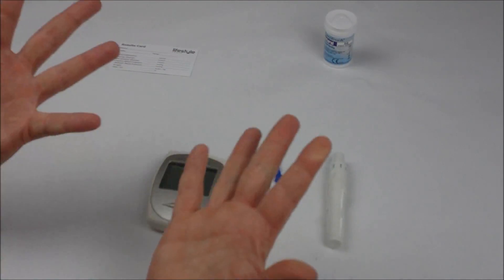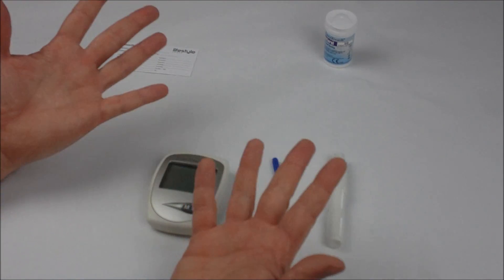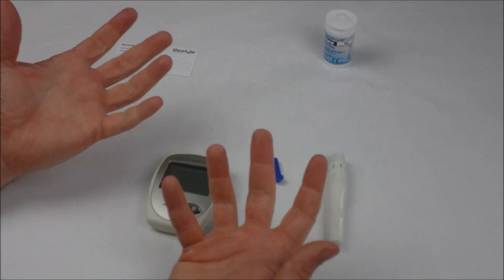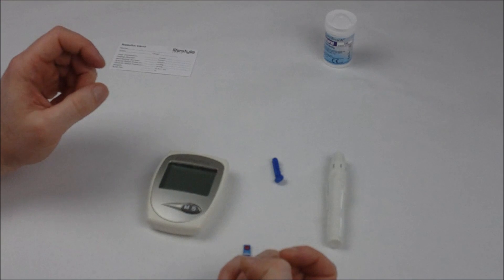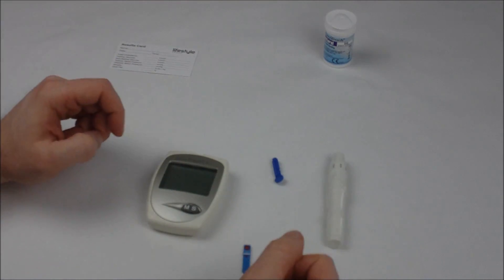When you're ready at this point, wash your hands in nice warm soapy water. That minimizes the chance of infection but will also make sure you have good blood supply to your fingertips so that you get a good blood flow when you prick your finger.